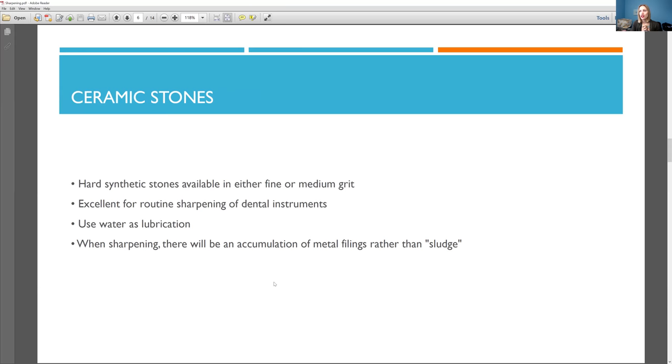That's why I like to sharpen at the end of the day. But of course, right? Like if you're seeing a patient and as you're cleaning, you think, okay, I can't continue using this instrument, but I need it. I need to do a quick sharpening. You can do that, but it's still not recommended because as I said, you want to put the cassettes through, but if you have to, you have to, right? So just try to wipe it off as much as possible afterwards.